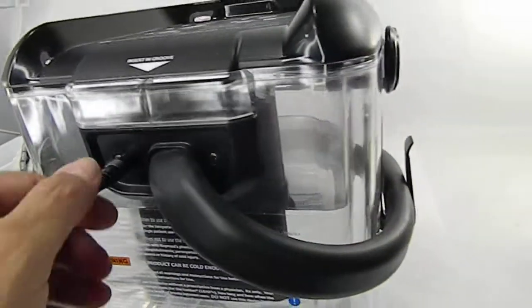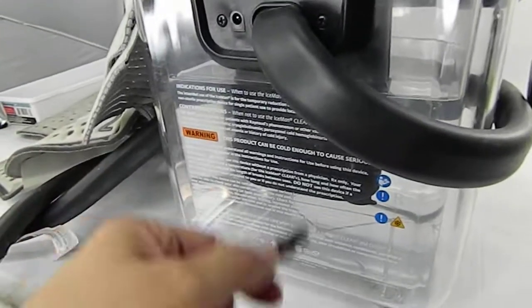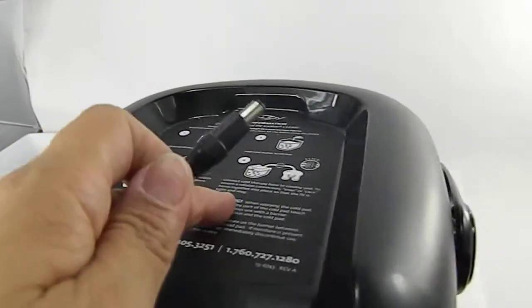There's no on and off switch. It says it right there, actually it says it up here.